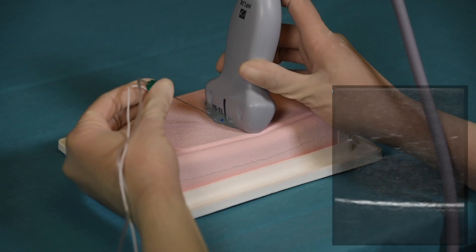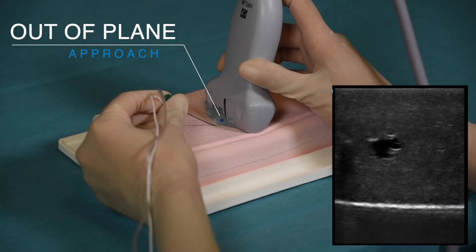The Essential Trainer can also be used to practice in-plane and out-of-plane needle approaches.